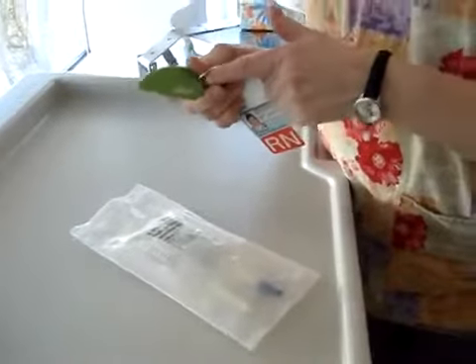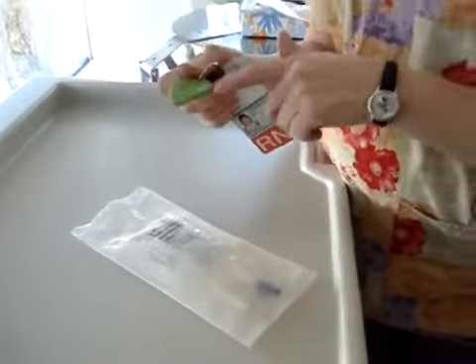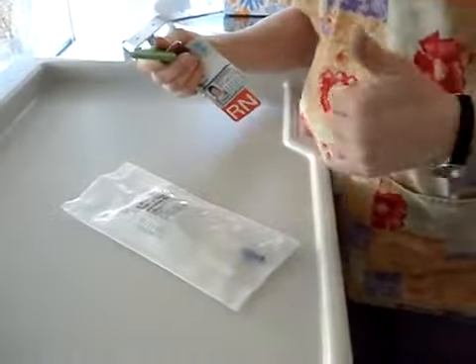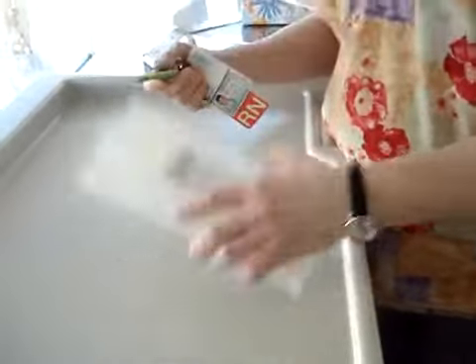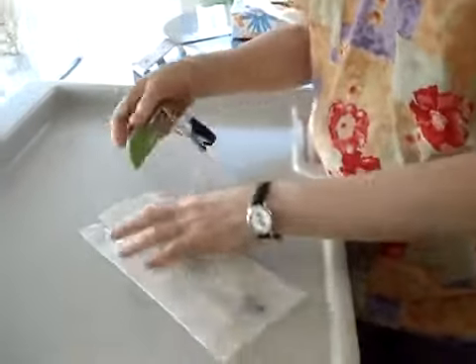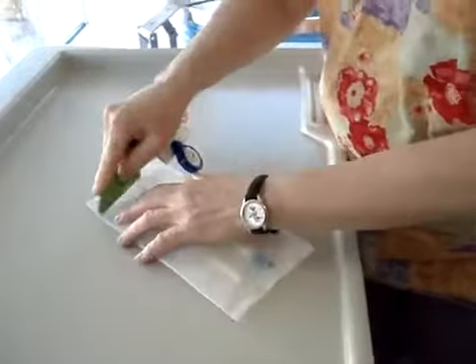Okay, so this is a product called Slice, or iSlice, and it works really well. I'm a nurse, and we get these bags of fluid, and they're very hard to open once you get past a certain point. So this comes in real handy.